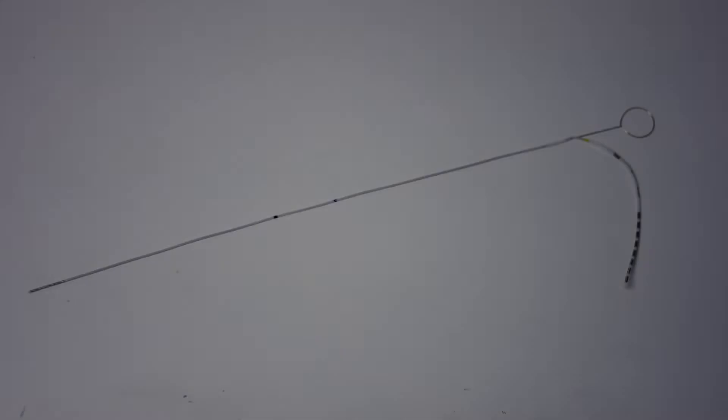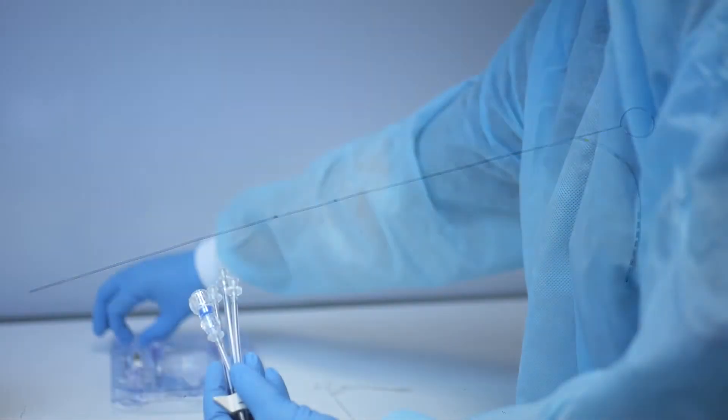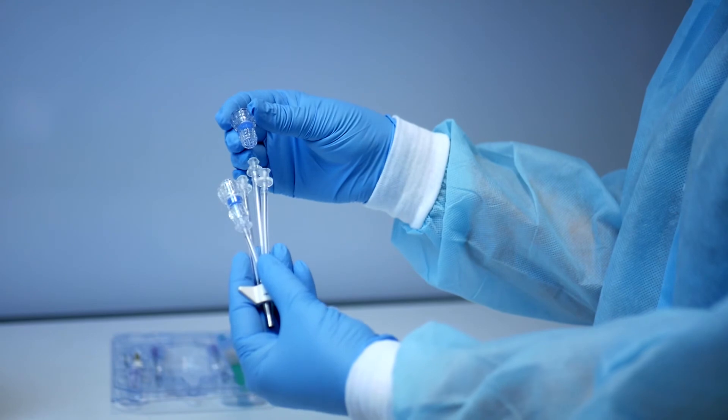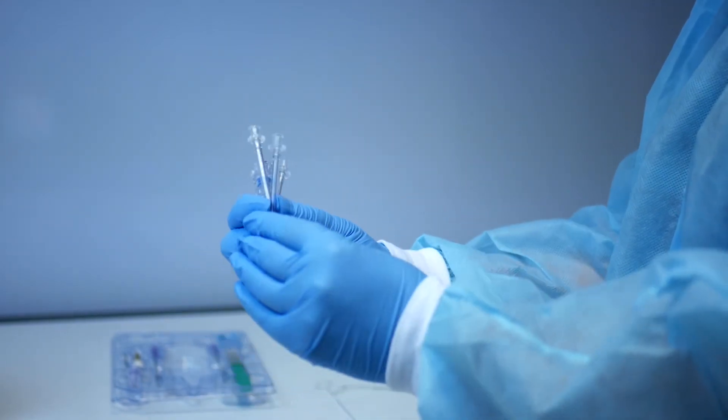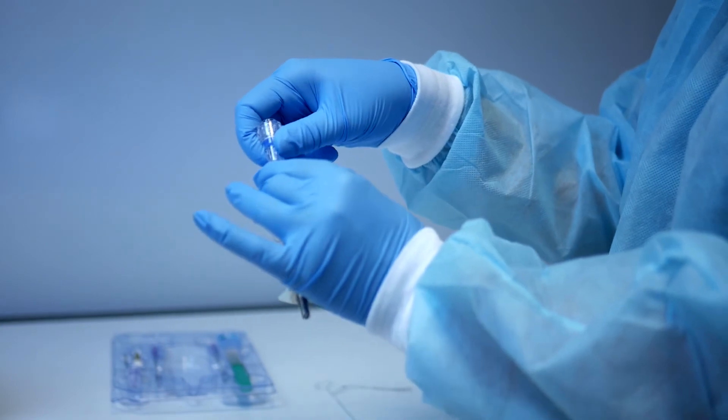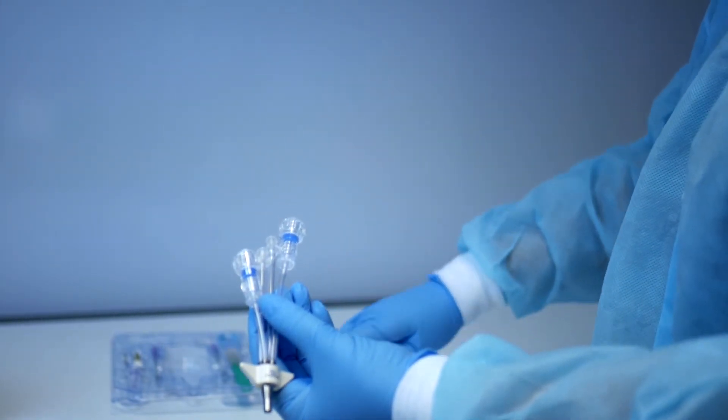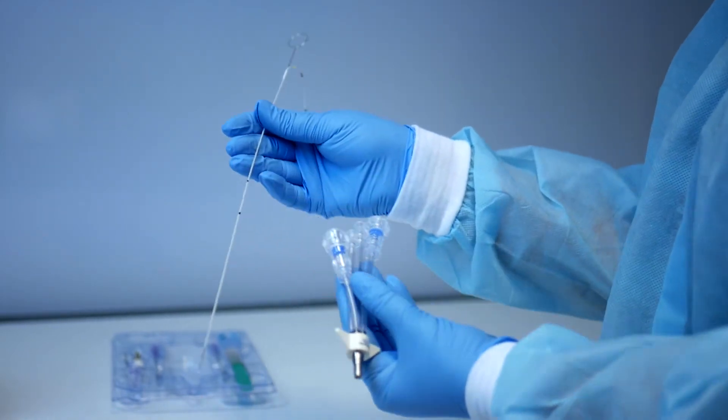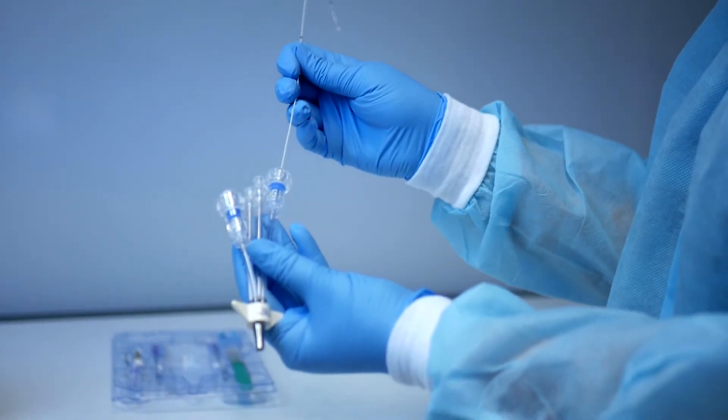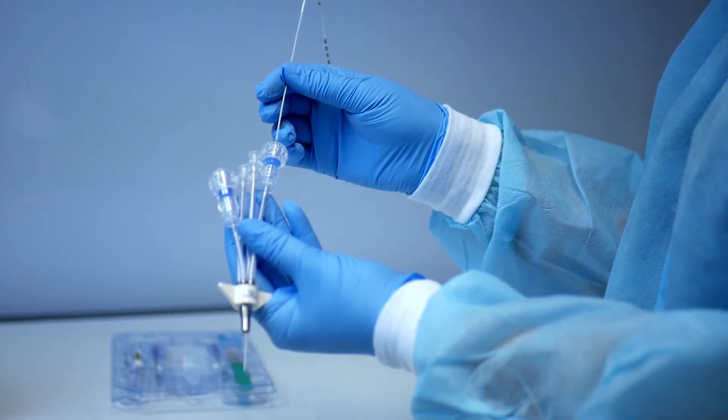This video will illustrate a common use of a Spencer probe depth electrode as an example. The depth electrode requires the use of a compression fitting from the quadlumen bolt kit. It is important to note that you must pre-mark the EEG probe using the quadlumen bolt prior to securing the bolt into the skull to achieve the desired depth of the most proximal electrode. Your specific clinical needs may utilize a different sensor or insertion at a different depth.